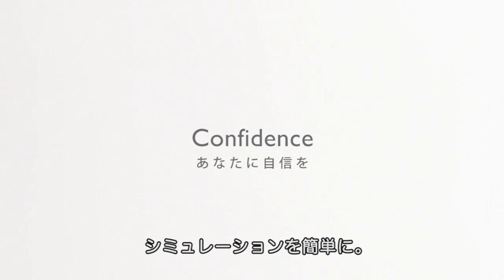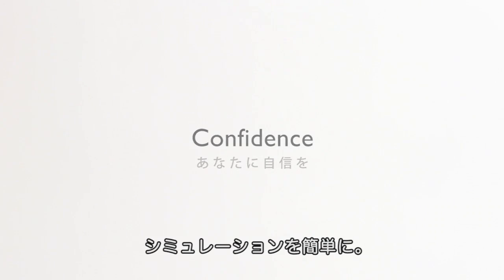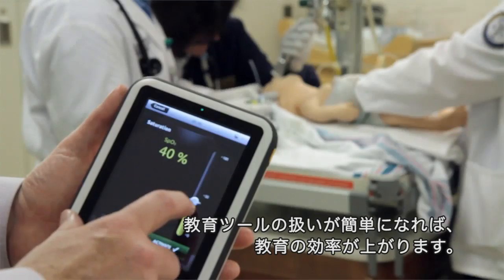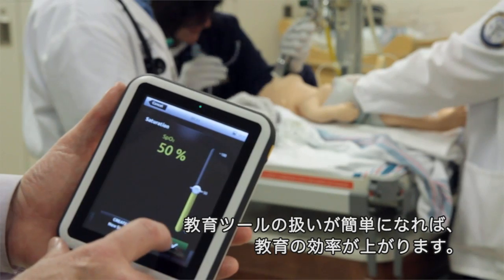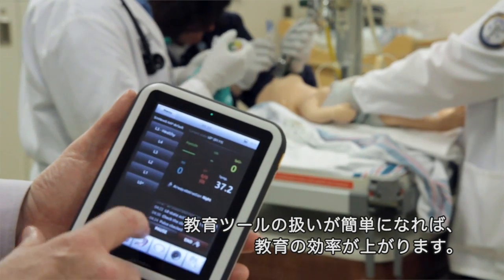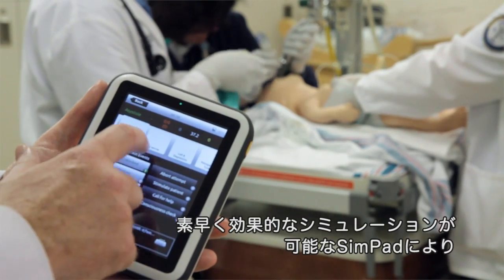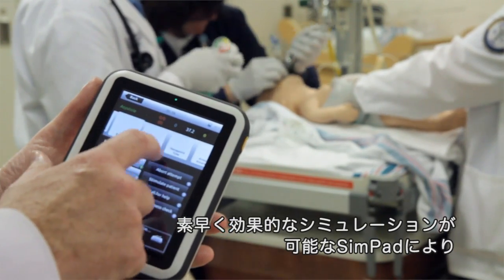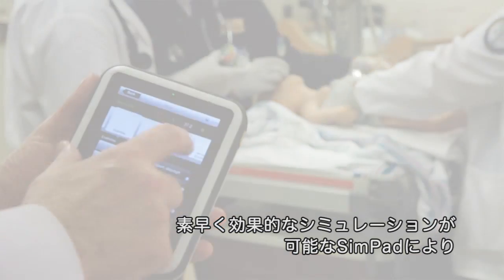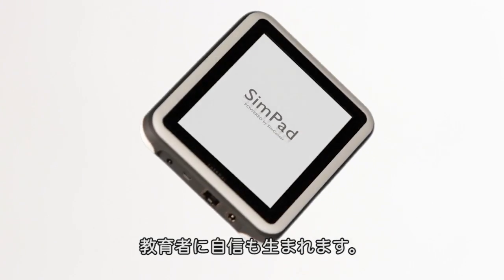Running a simulation just got easier. When simulation tools are easy to use, teaching becomes more effective. SimPad gives you the confidence to know that you can run simulations quickly and efficiently.